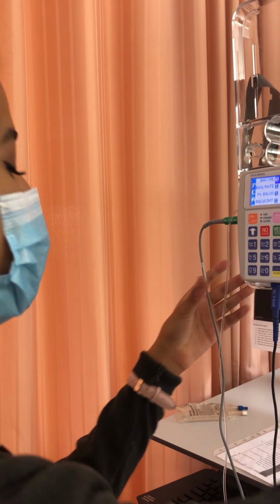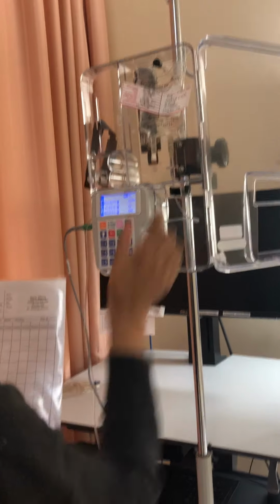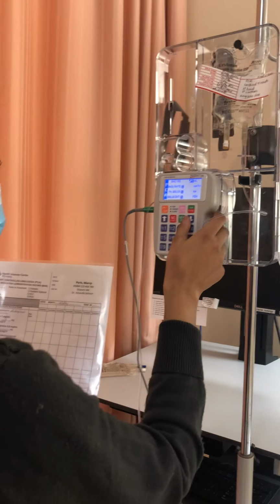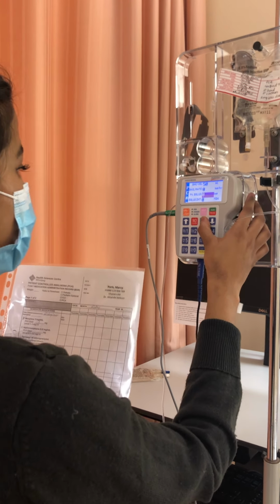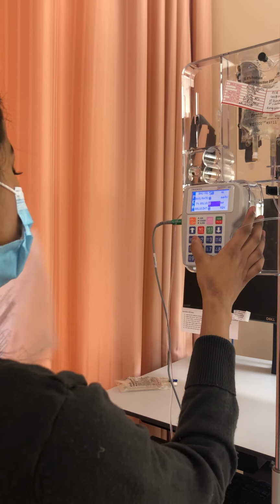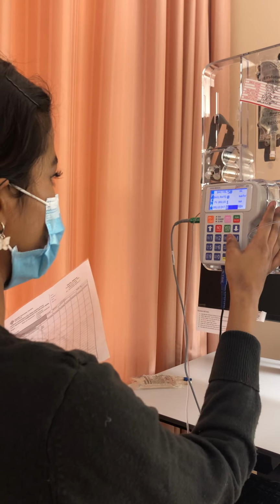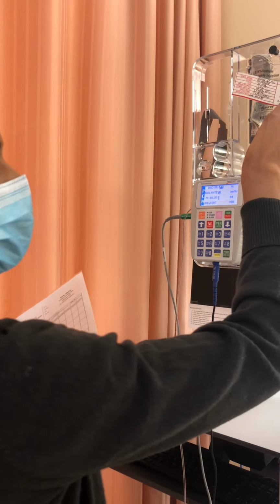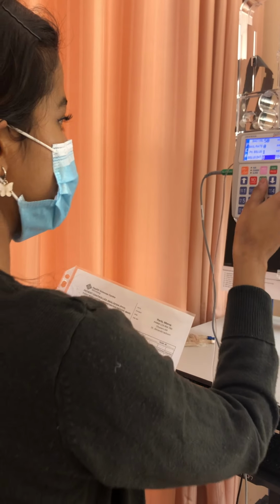So I'm going to start programming the pump. I'm going to use my MAR and my label to program it. So our bag volume is 50 mLs as per the label that I have written over here. So yes for that. We don't have a basal rate, so 0. Yes for that. And the bolus that the patient is going to be receiving is 1 milligram. So yes for that. And the bolus interval is 5 minutes. So we have the lockout interval 5 minutes according to my PDM and my MAR. So we have 5 minutes lockout. So yes.